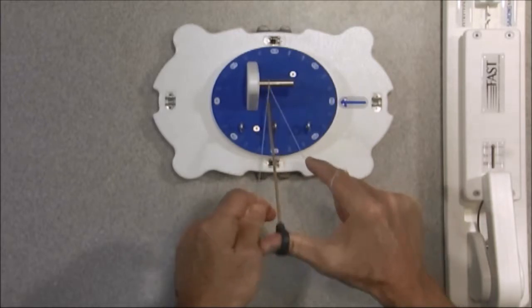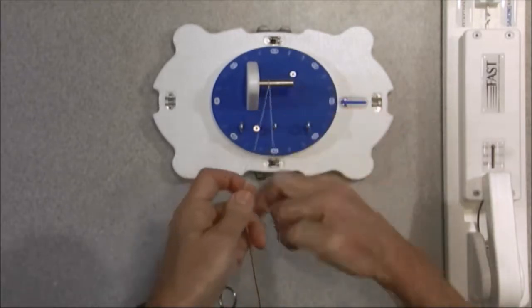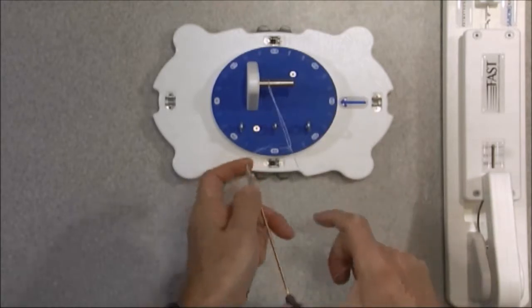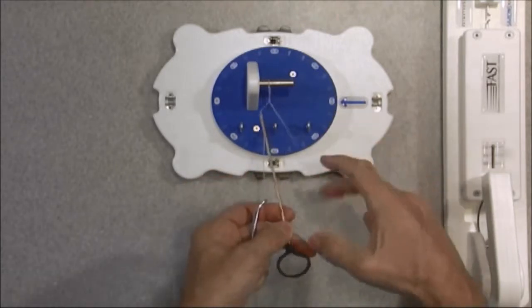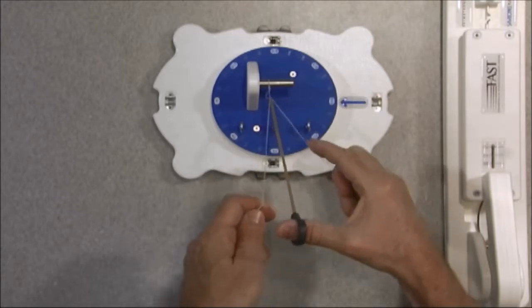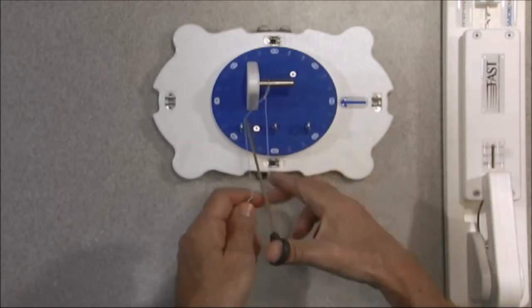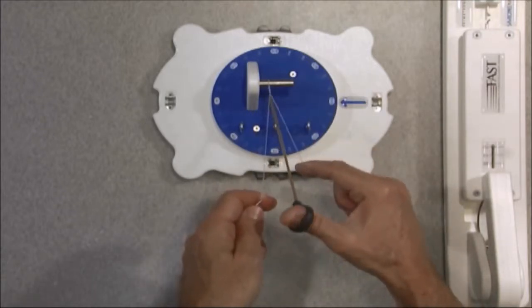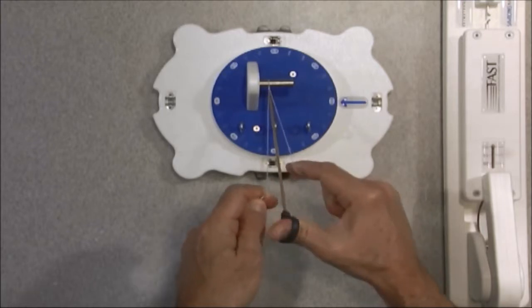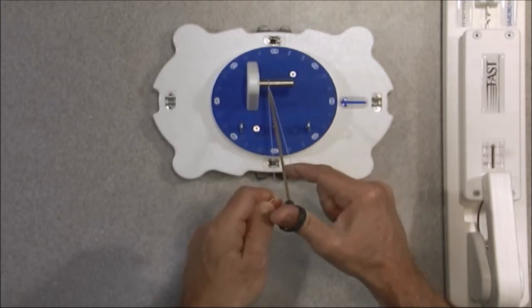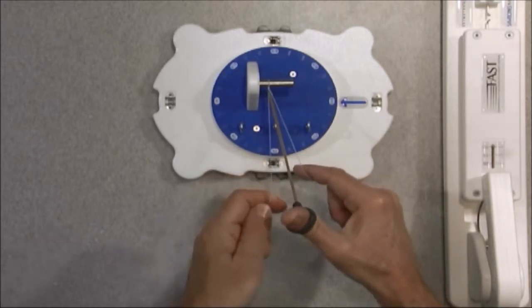I'm cinching it down, but primarily all the tension is in my left hand. I'm going to do another one. I'm going to come down and again cinch this down. But my post is in my left hand. Essentially what I've done now is I've stacked a series of half hitches on a single post in my left hand. So that knot might look pretty.